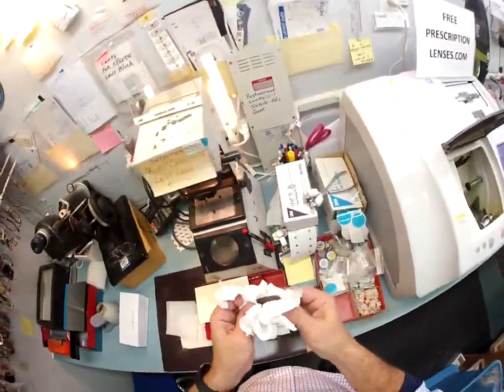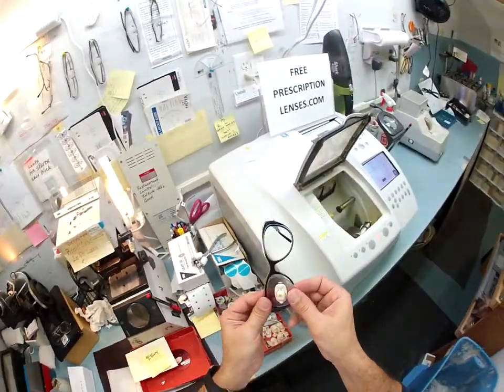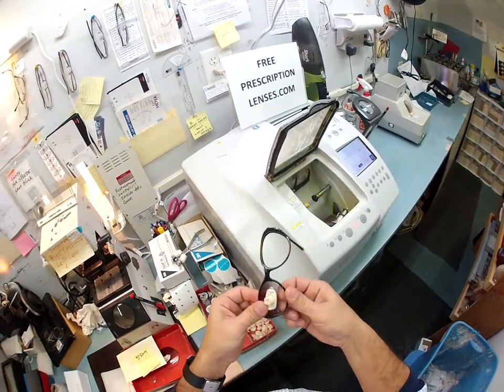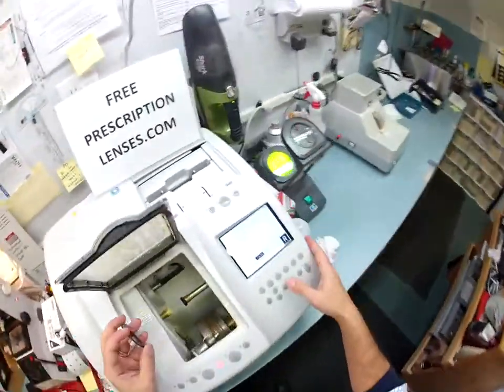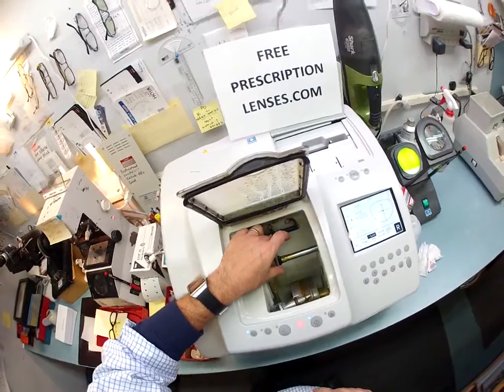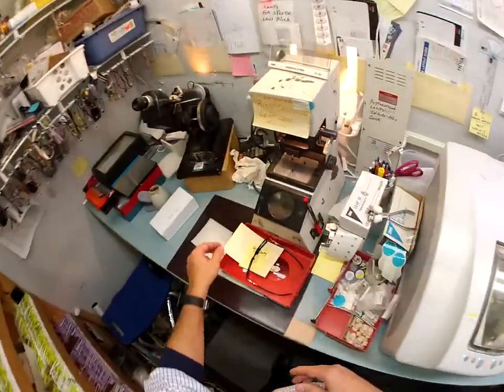Let me dry your lens off again and try once more to mount it into the frame. I start at the outside corner then push down at the nose — it's being slippery again. Some more needs to come off, so I'm going to take another tenth of a millimeter. The right lens takes the longest; once I get the size right I can cut your left lens rather quickly.